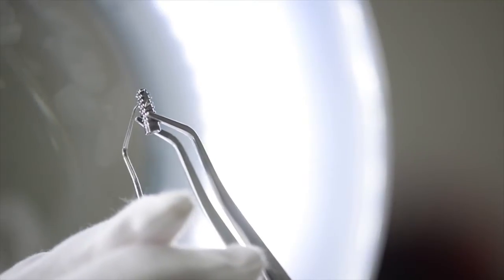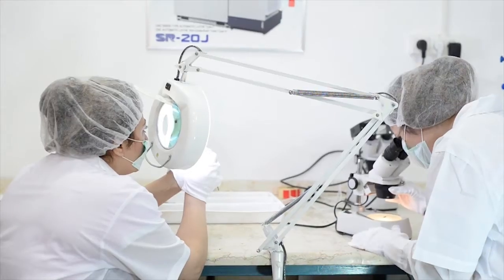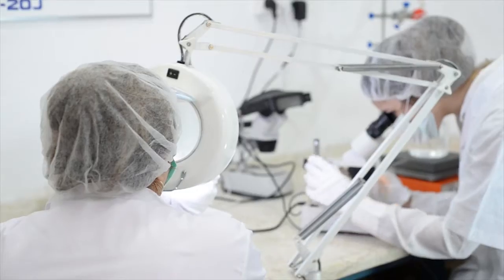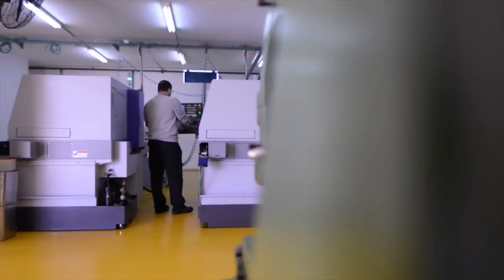Alphagate is a global leader in dental implants. Since 1996, over a million new teeth have been implanted.